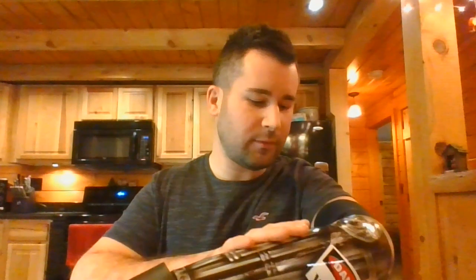I use the black glove — I feel it goes well with the overall theme of the arm. This is a two-channel system, so I have one electrode right here and another electrode underneath. This electrode closes the hand and this side opens it.